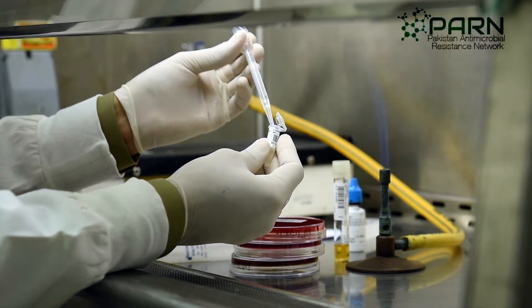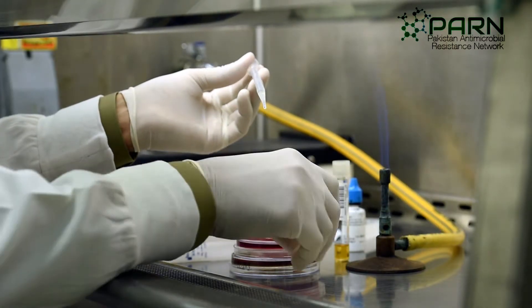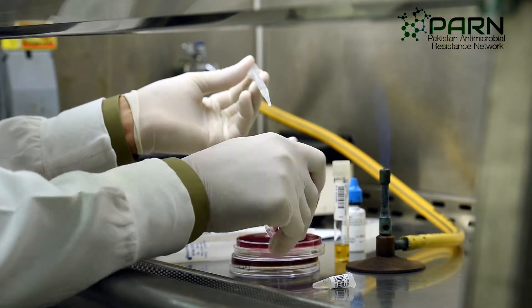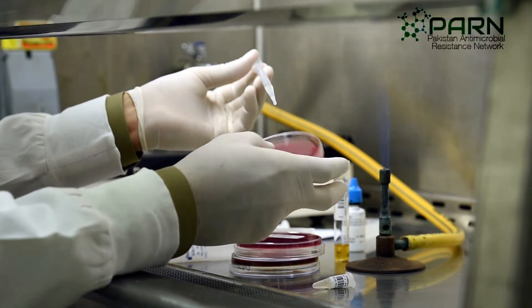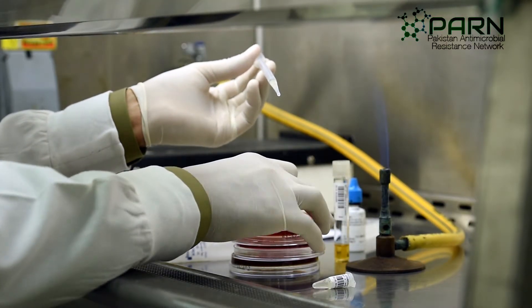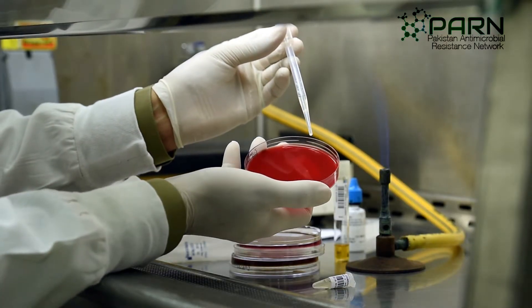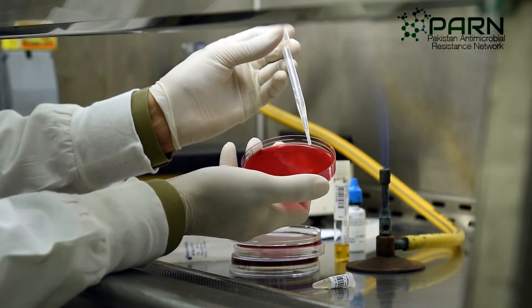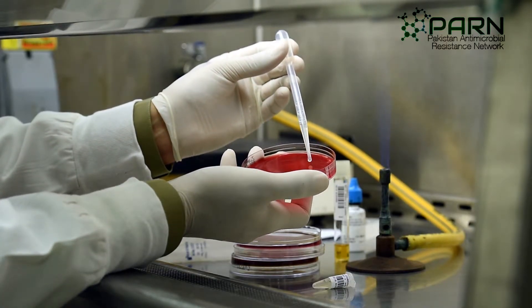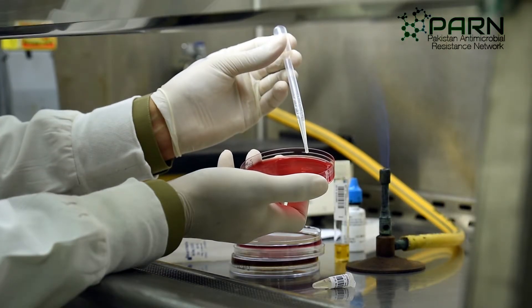Using a sterile pipette, aspirate from the bottom of the tube and place 2 drops each on sheep blood agar, chocolate agar, and MacConkey agar. Add a few drops into an enriched broth medium — here we are using brain heart infusion broth.